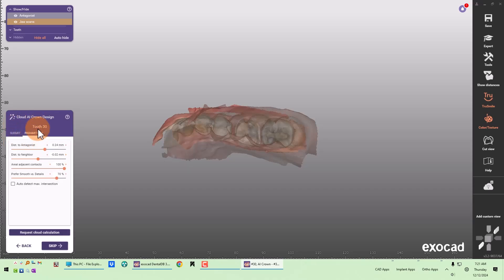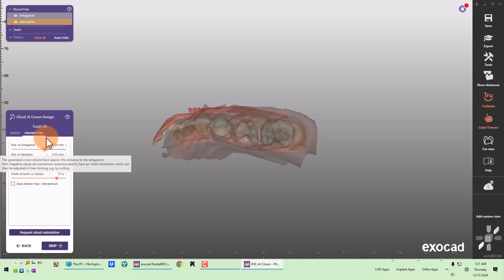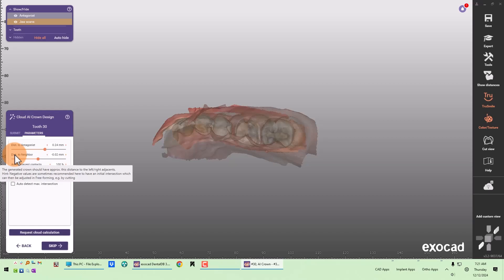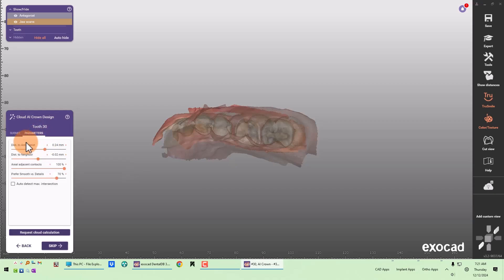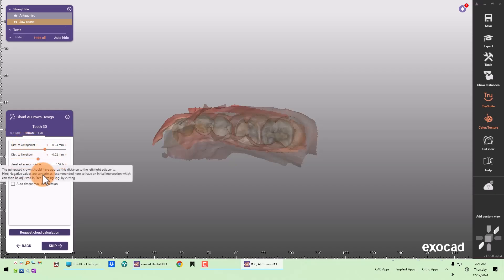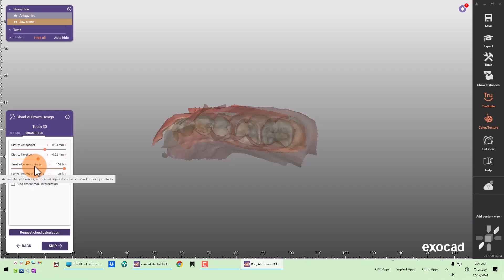If you go into the parameters window, you can instruct ExoCAD to make the occlusion a certain distance. Same thing with the contacts — the proximal contacts. I have my distance to antagonist set at 0.24 millimeters and distance to neighbor (proximal contacts) at negative 0.02 millimeters. The adjacent contacts option activates to get broader, more area contacts instead of pointy contacts. I have mine set at 100% — I like broad contacts.